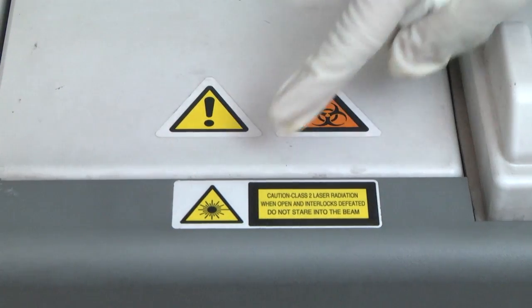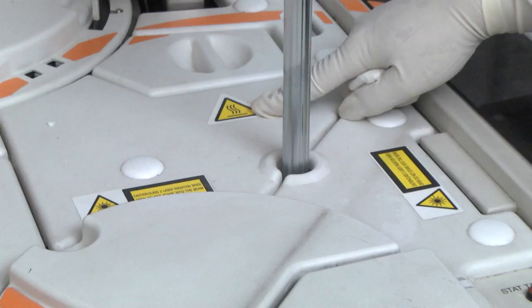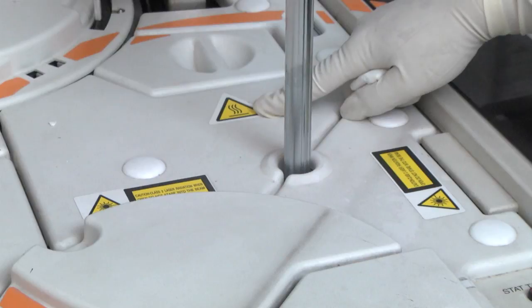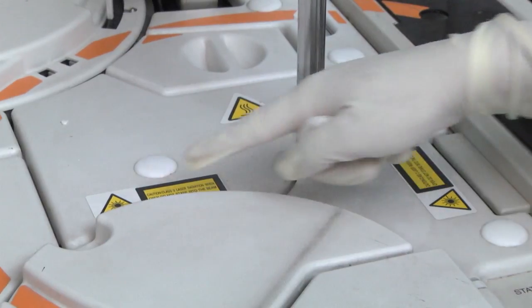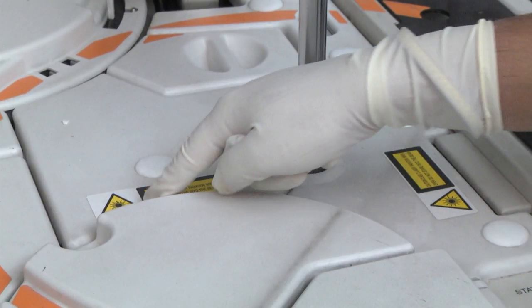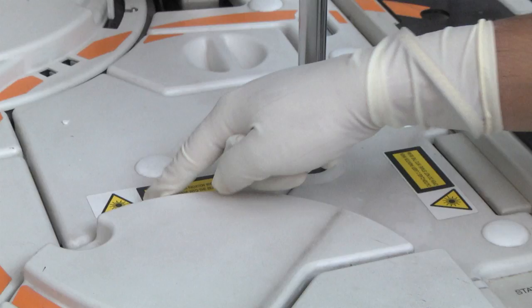Multiple pictograms depicted on the machine issue warnings against certain actions that need to be avoided. Pay heed to these warnings.